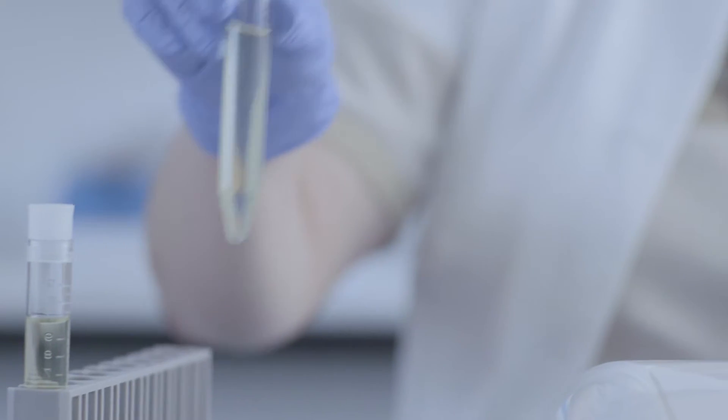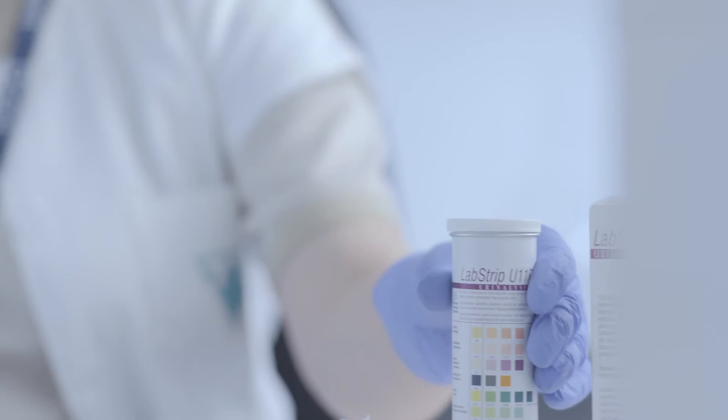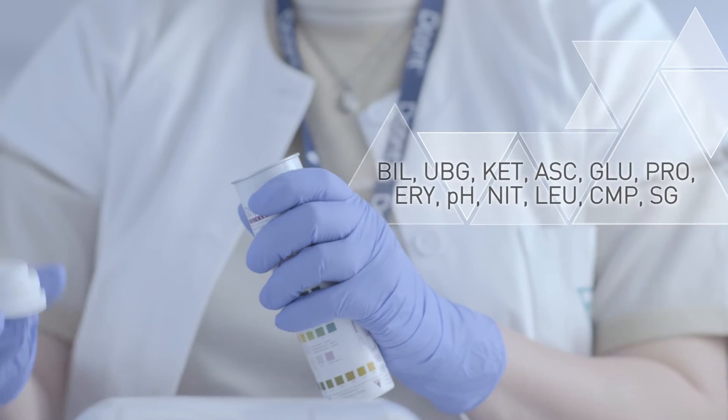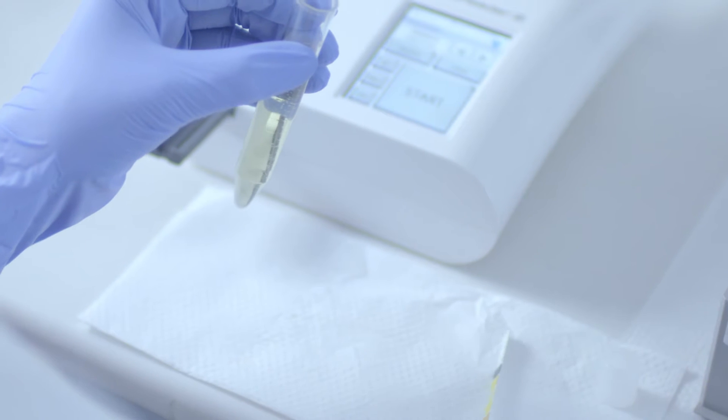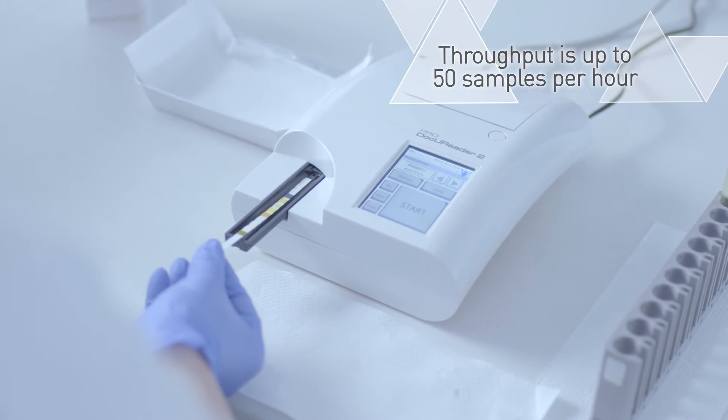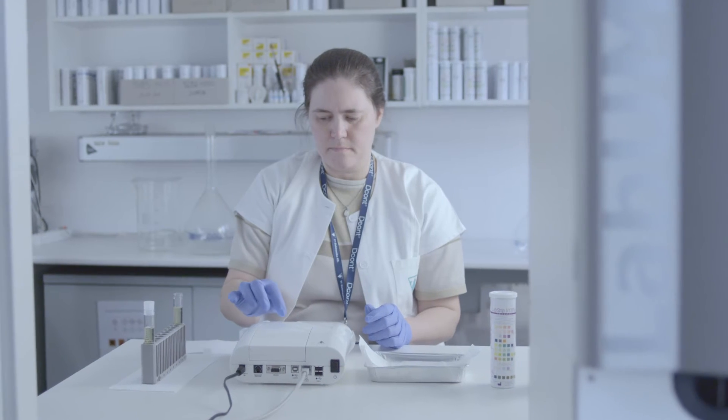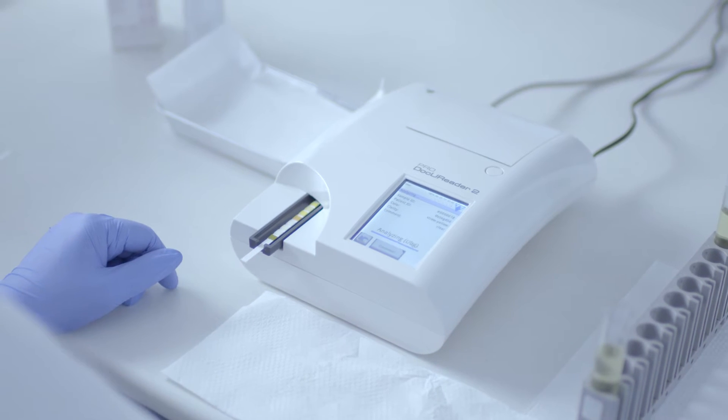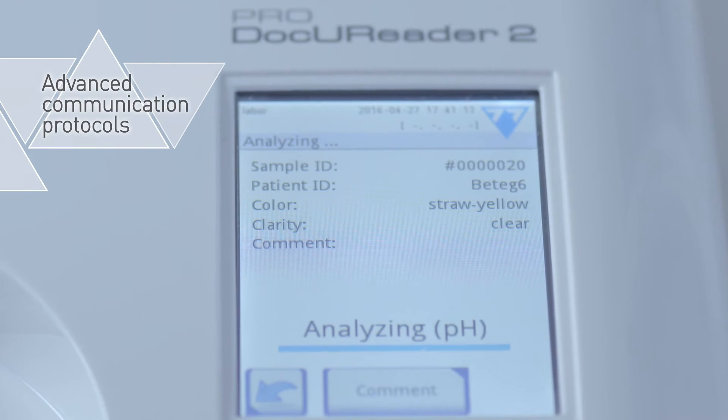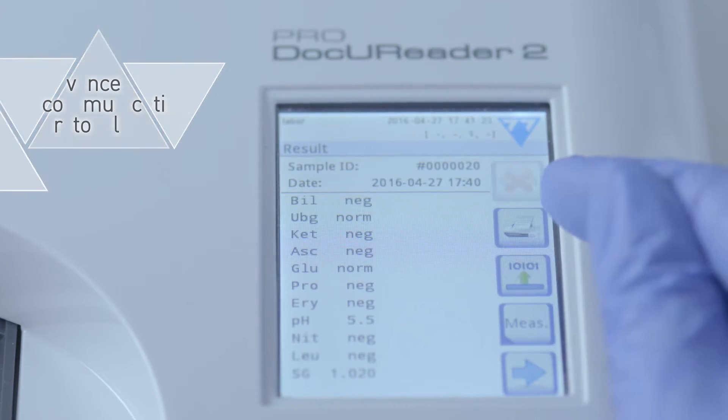Labstrip U11 Plus is dipped in the sample then placed on the strip holder. Optional meta information can be assigned to the result like patient ID, sample color or turbidity. Sample results can be rapidly transferred to a local server via different standard LIS communication protocols.